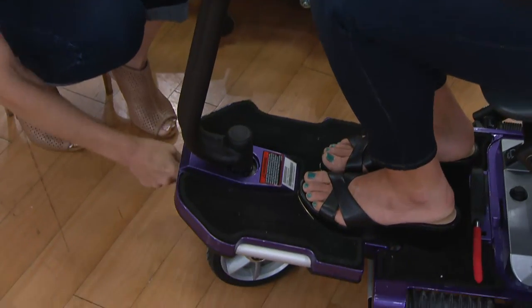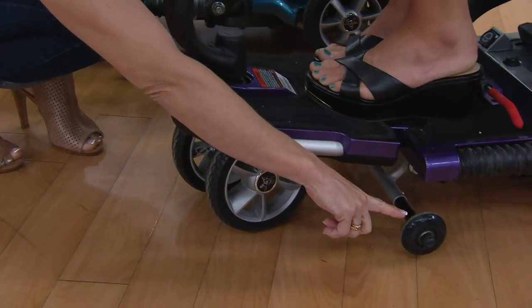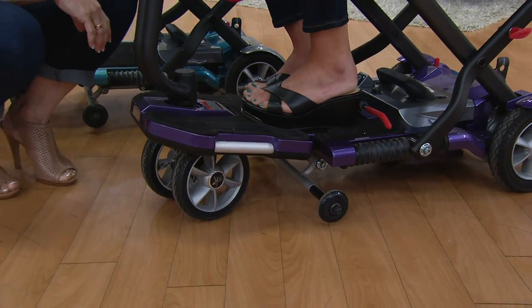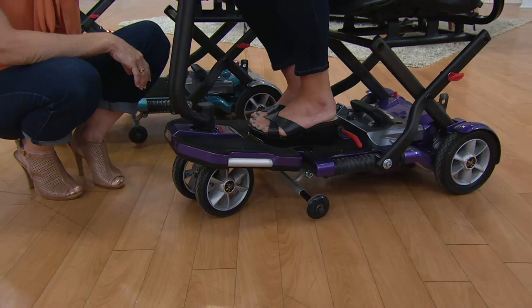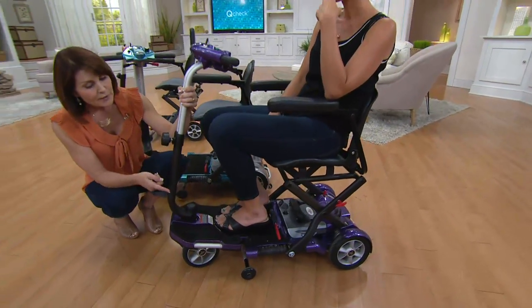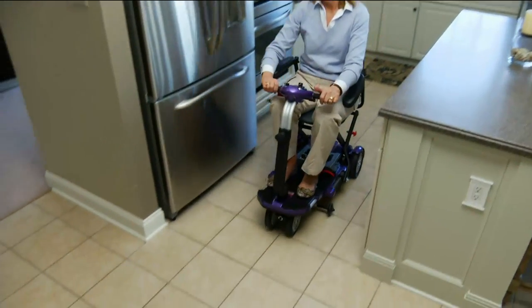These are solid tires — not air-filled wheels that will ever go flat. We give you anti-tip stability wheels on the side, which is great. So even when you're making tight circles and turns, as we're going around in this studio, you don't feel uneven at all. Great maneuverability. We also give you stability wheels in the back, which are hard-pressed to find on a mobility scooter.